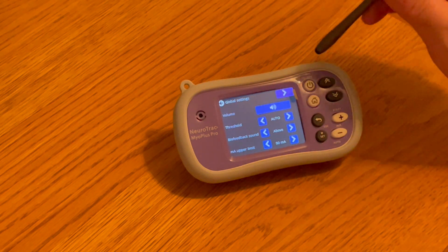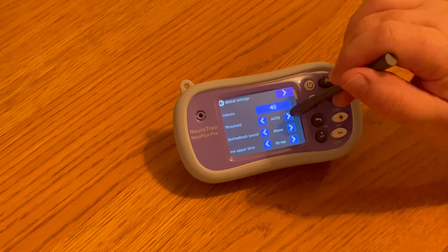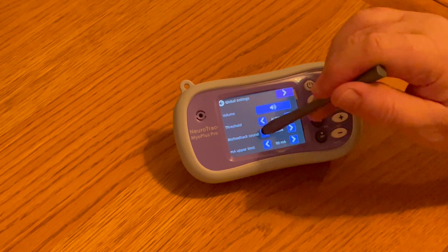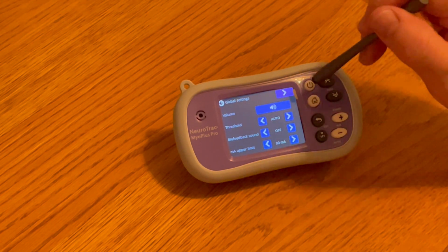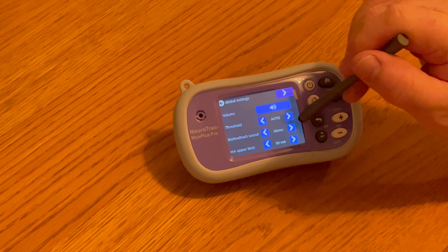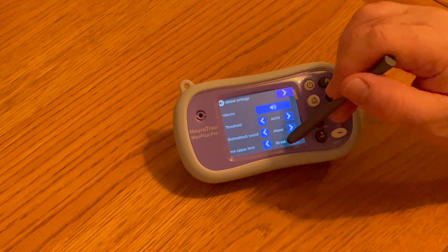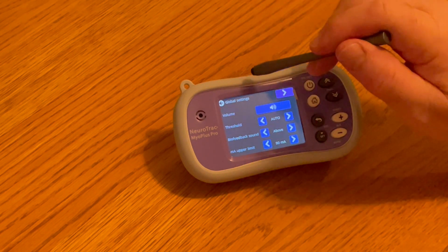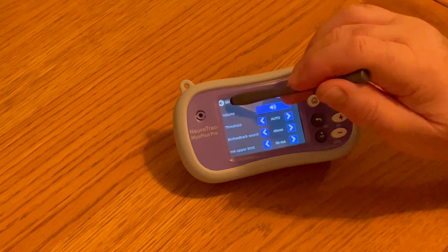Use the back arrow to go back to where we started, and we can see here we can set the threshold for auto, and onto manual we can have the biofeedback above, below or constant or off. I prefer to have the biofeedback above. We can set our milliamp upper limit up to 90 milliamps. No particular reason to do that except for stimulation. It means we can't go any higher than 90 milliamps.